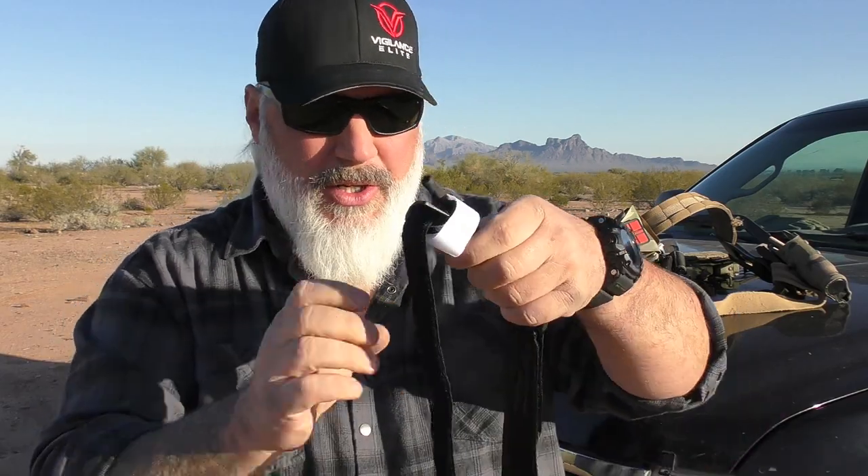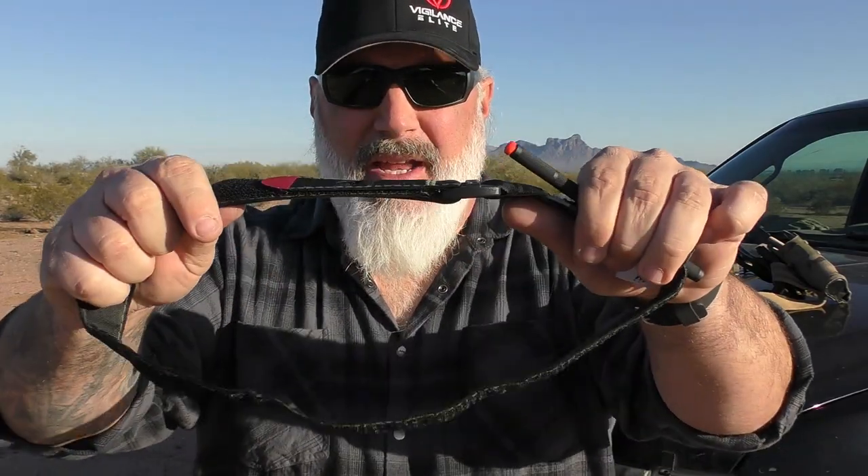That's just a real quick video on staging tourniquets ready to go, as opposed to having everything folded over and maybe this thing not folded right — pulled too tight or too loose — or some people may not have it in there at all.